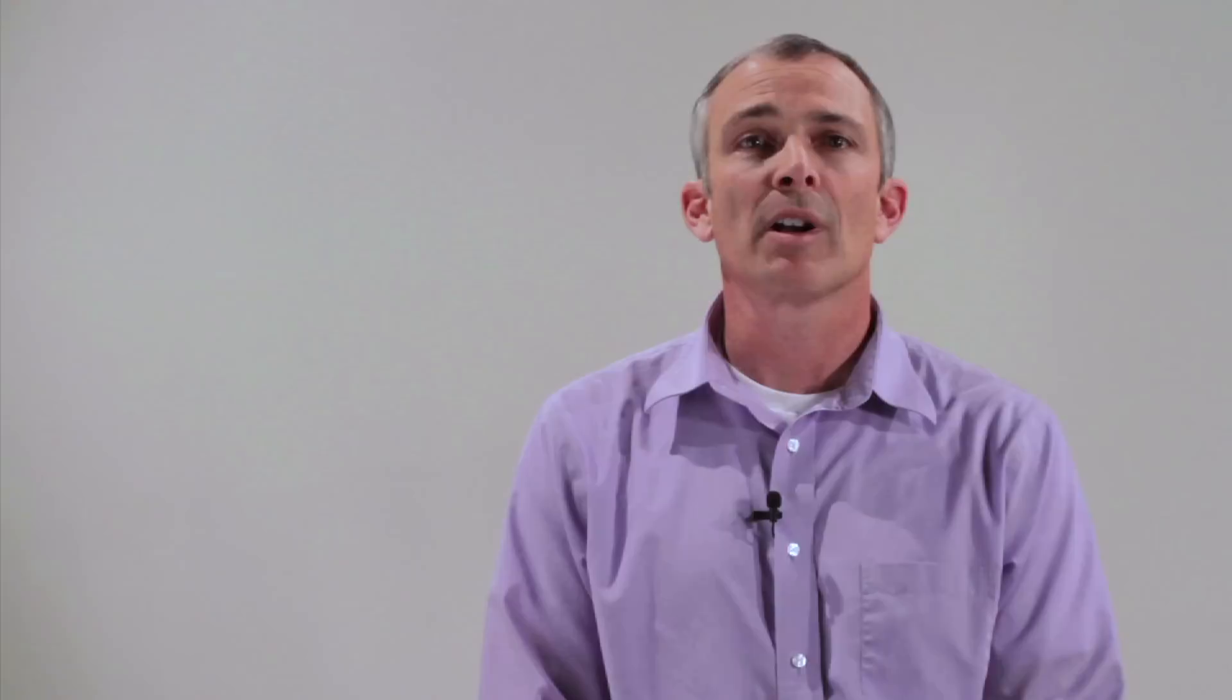I'm here today to introduce you to a product named Shower Shield, which I think can solve the problem of how to protect large areas while showering in a convenient and economical fashion.